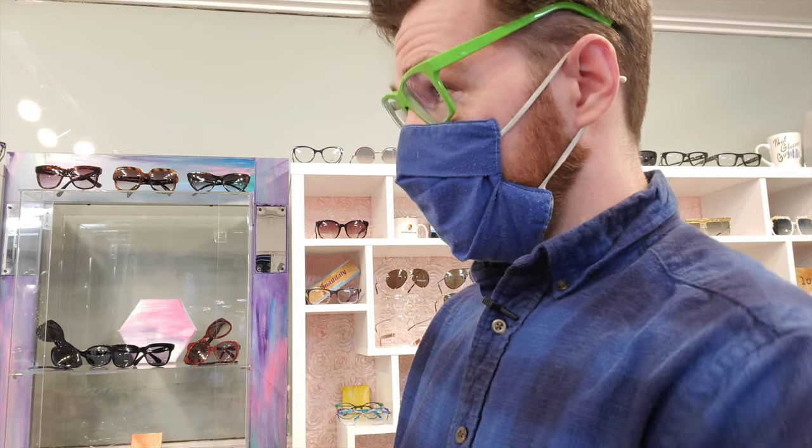What I actually came to talk about is the tilt of the glasses in front of the eyes. The key is this angle here. Sometimes you see glasses not properly fitted where the tilt is way off — creating a whole lot more angle. If you put them down like this, that changes everything. You're actually inducing extra cylinder into the lenses, not only decreasing the sharpness and clarity of the vision but really affecting how things look.